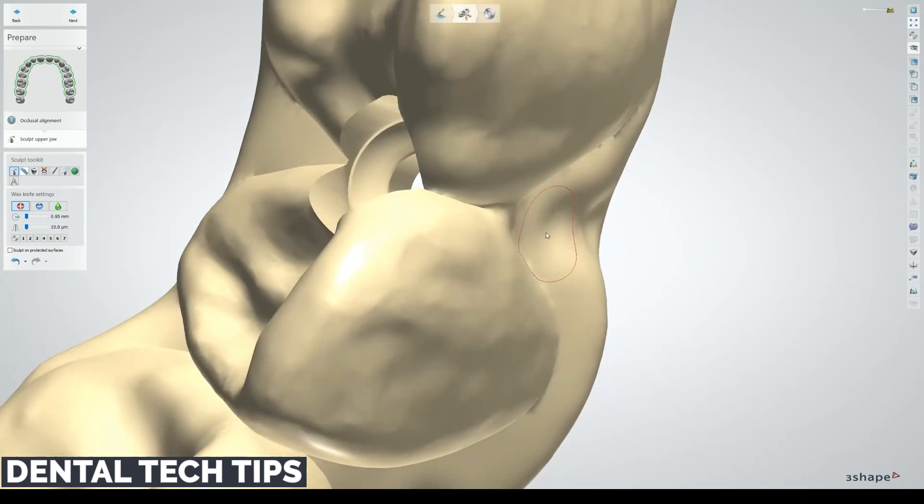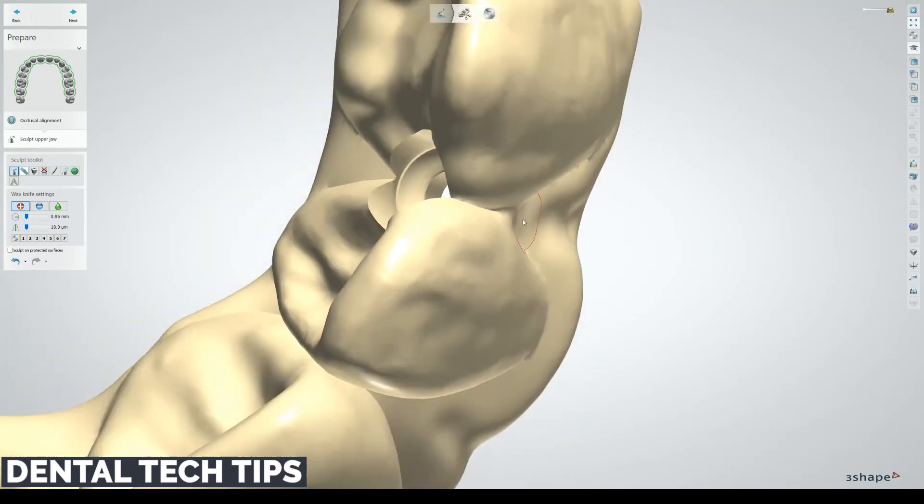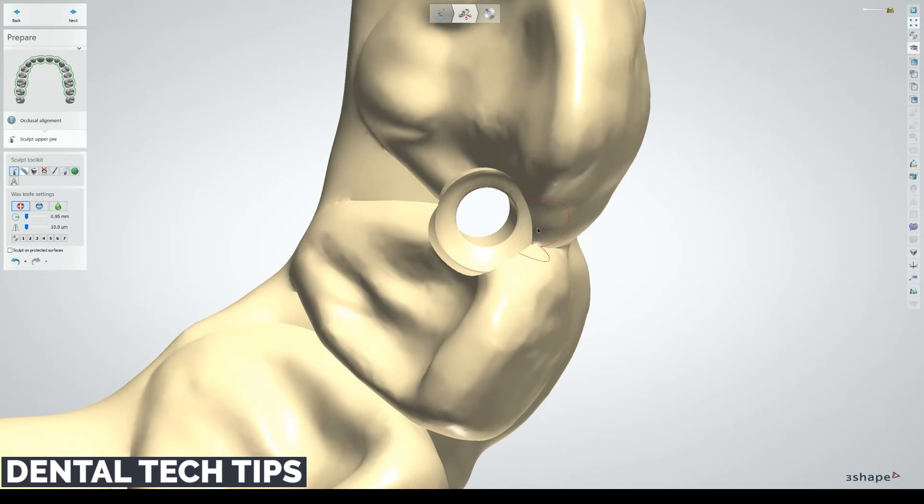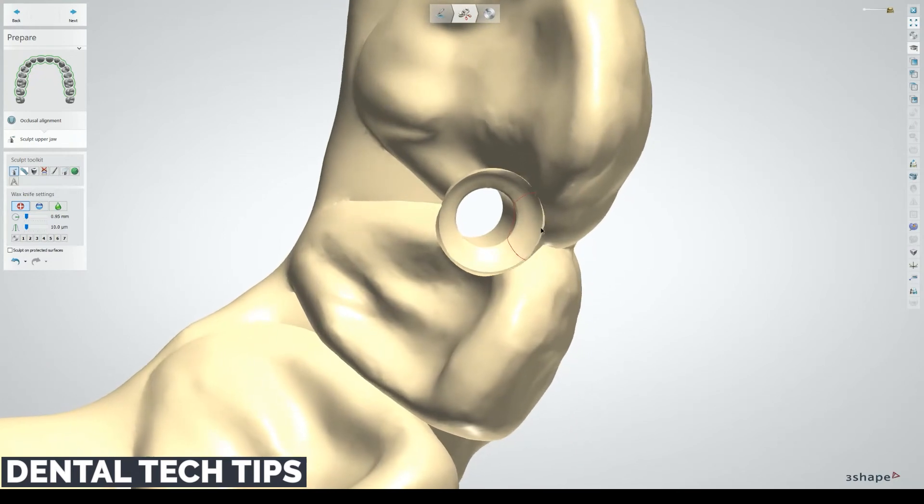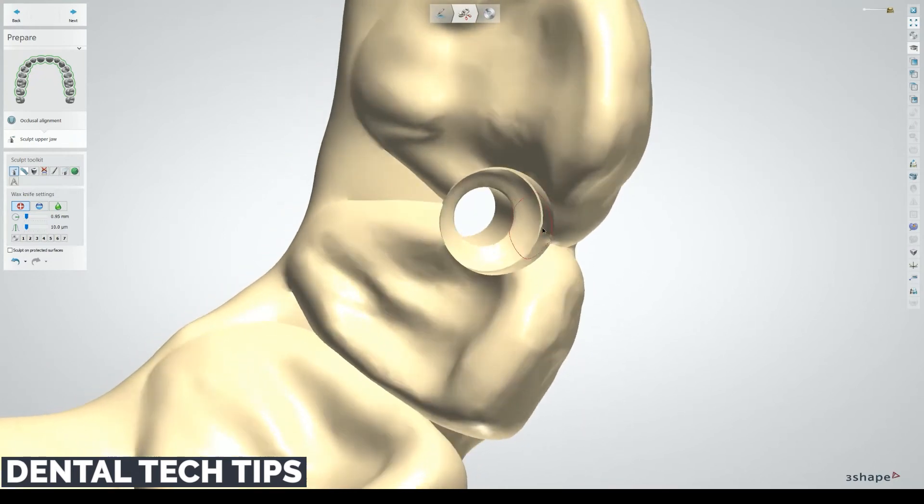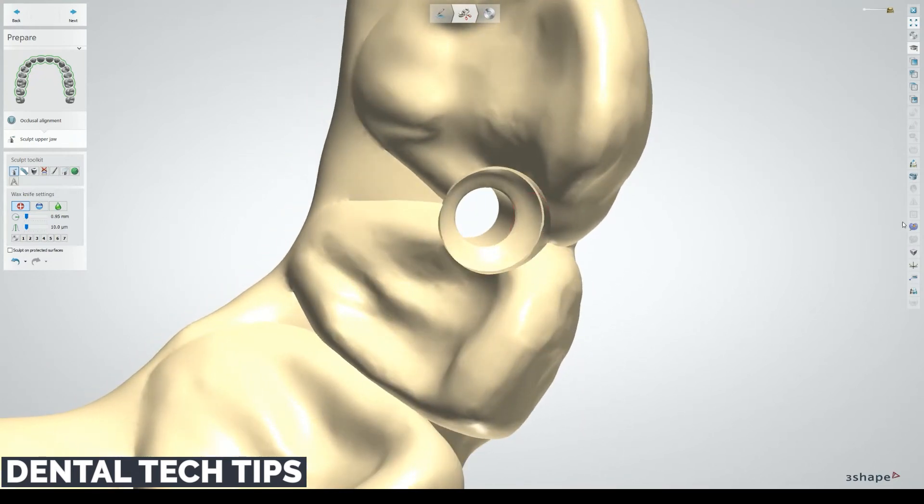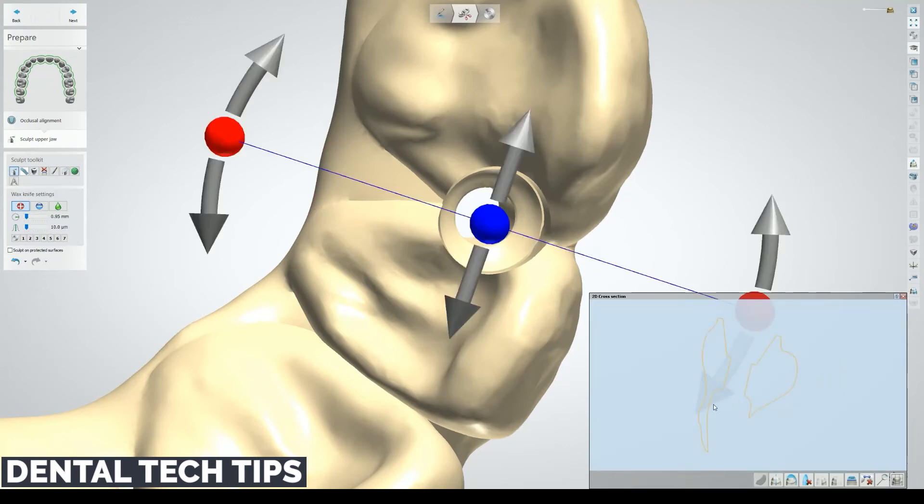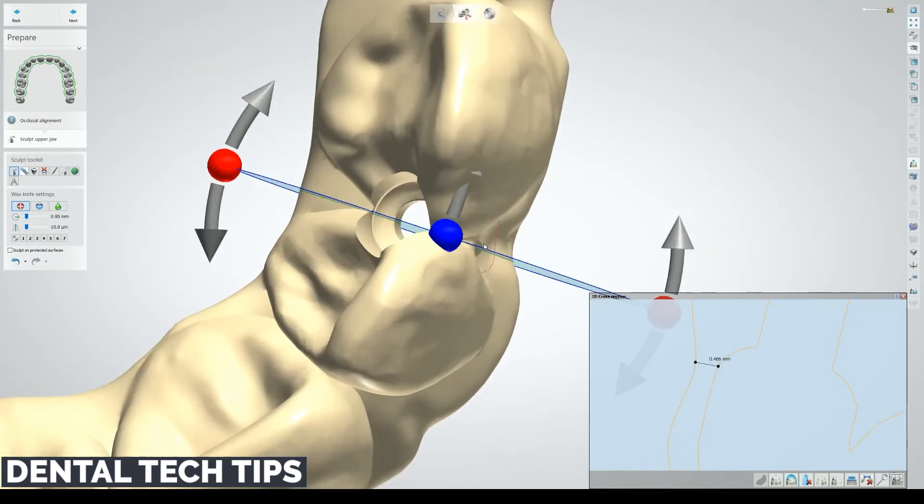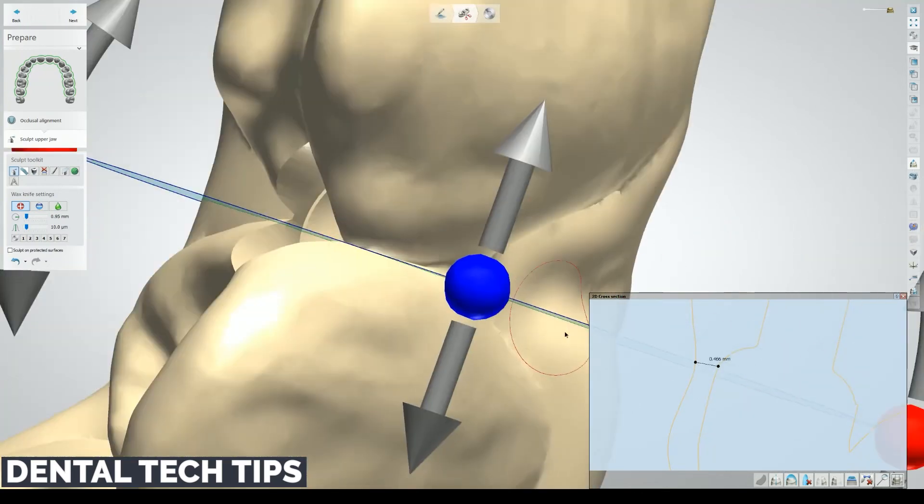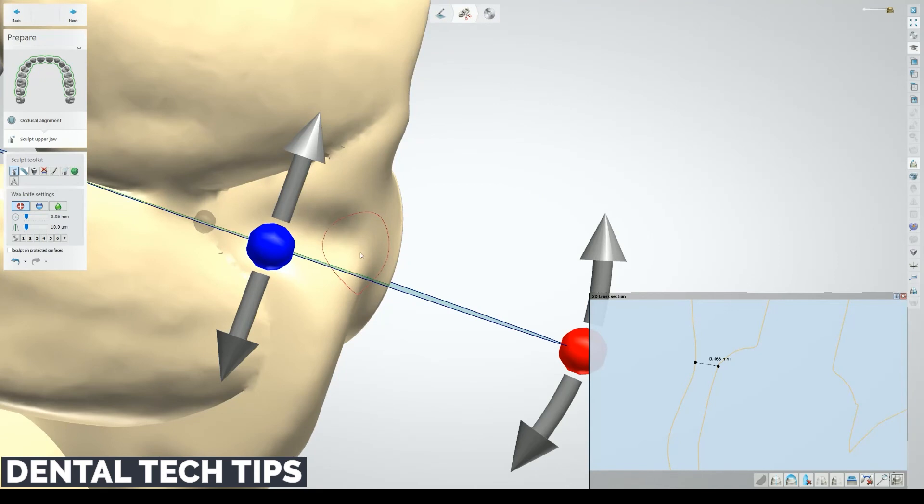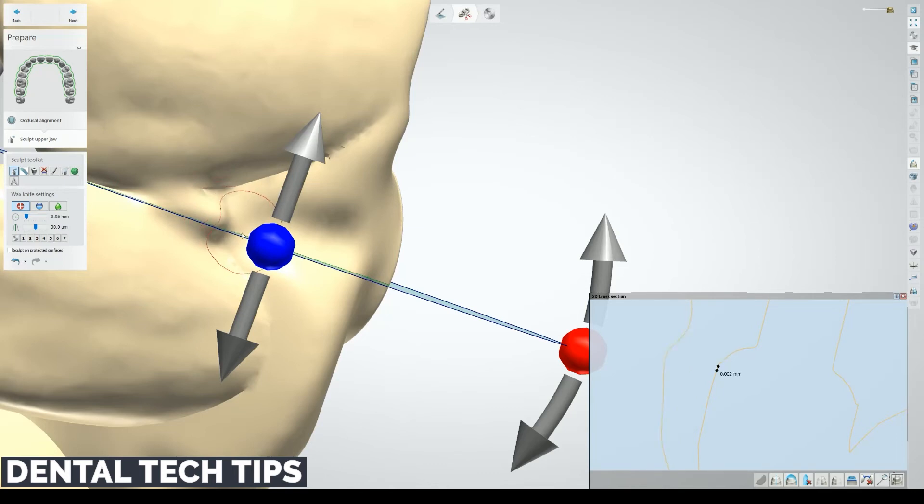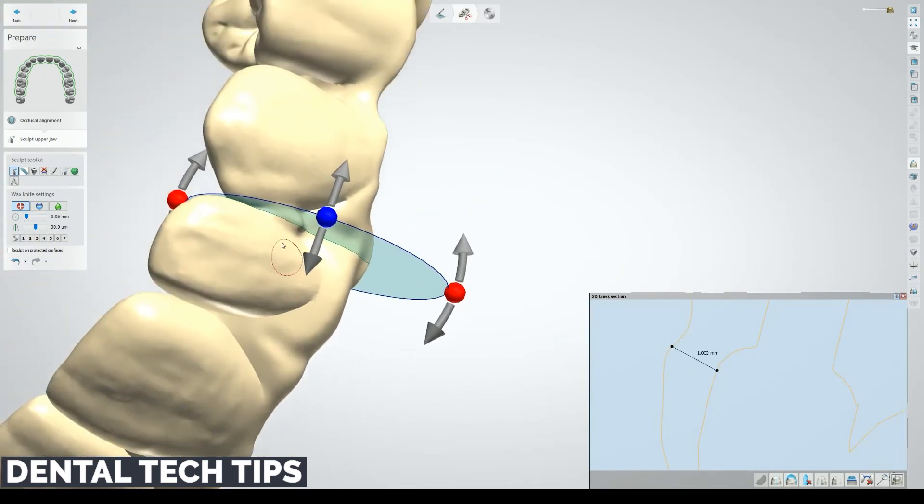Again, if you're not using a C-clamp and you're just kind of milling this, I doubt that the burr will even reach there. But we'll do a 2D cross-section. Four tenths, I'd make that a little bit thicker there. How am I doing now? One millimeter? That's pretty good.